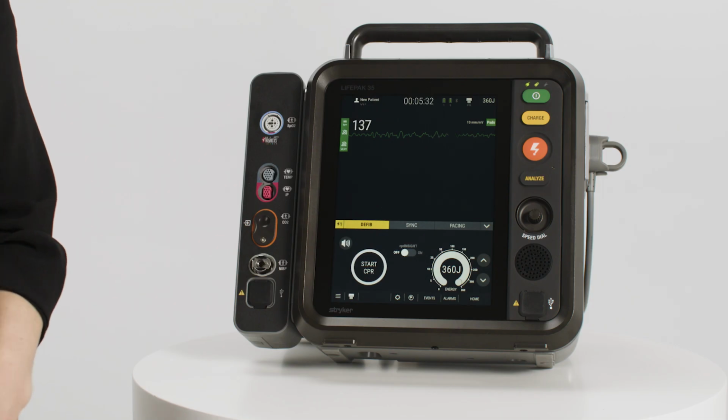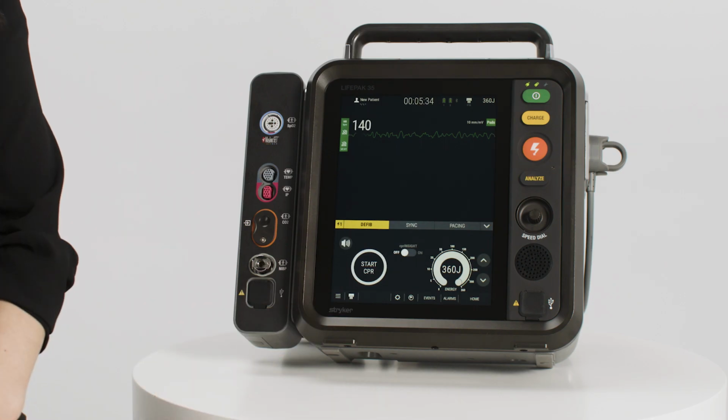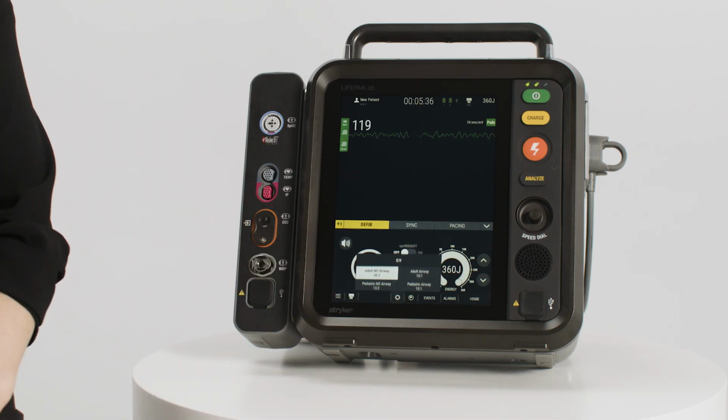The CPR timer ensures that CPR is performed for the length of time specified in your protocols. The CPR metronome provides audible prompts that guide providers to deliver CPR at a predetermined rate. The metronome also provides audible ventilation prompts to cue the rescuer when to provide ventilations. Selecting the gear icon will allow you to select additional compression-ventilation ratios. Compression rates and prompts may vary, so always check your local protocols prior to use.